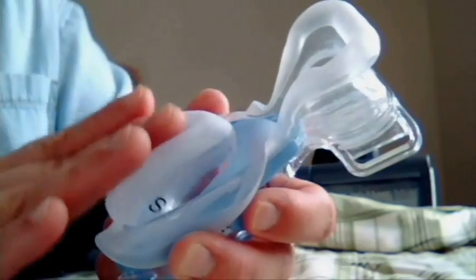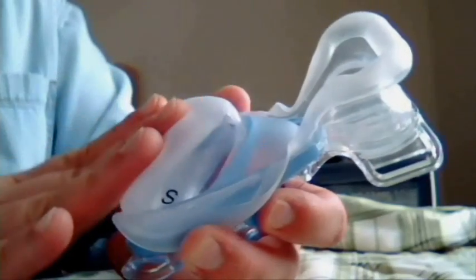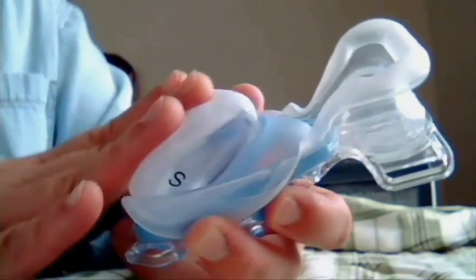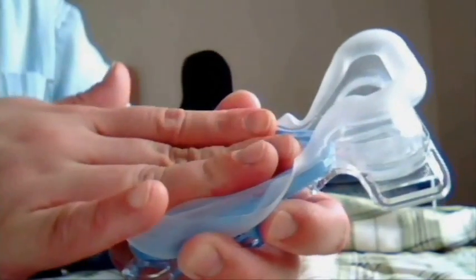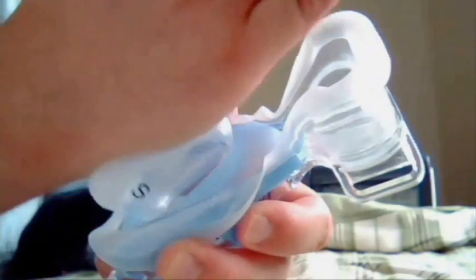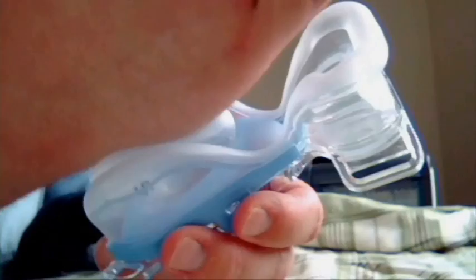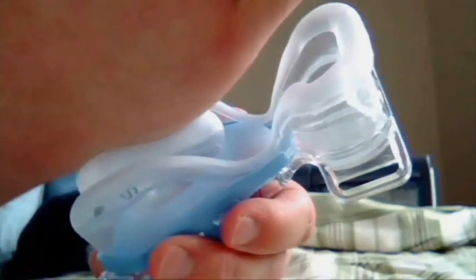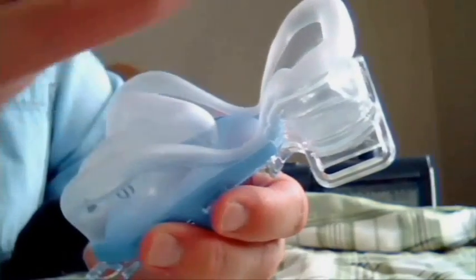This one's a little bit lighter. Here I'm using the pads of my fingers to go up and back — that works a lot better. Right and left. I'm going to drop the outer cushion back in to show you what it looks like when it's wrapped around. There we go. That even comes out past that, but if you look at where the outer cushion is, that's actually where it's going to engage your face and take some of the pressure.